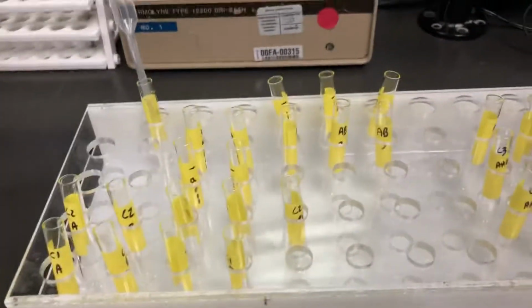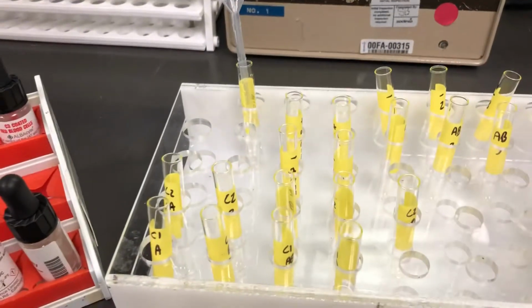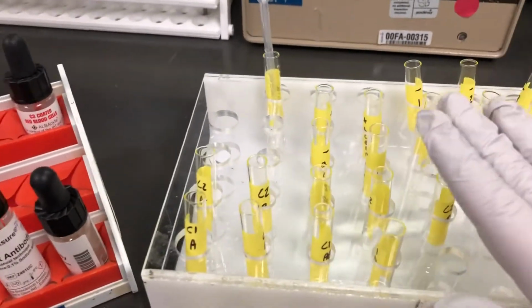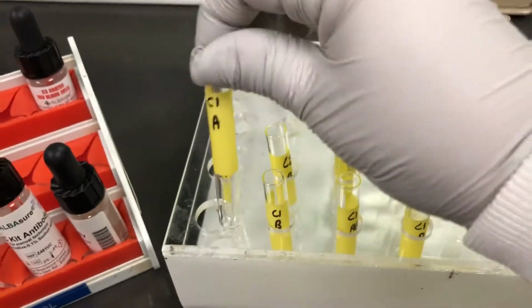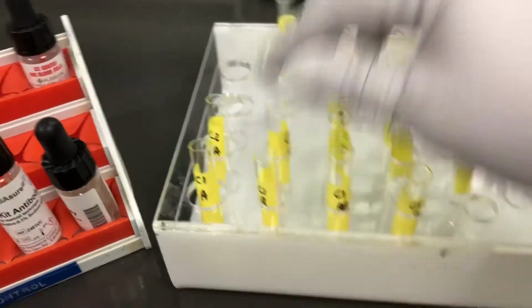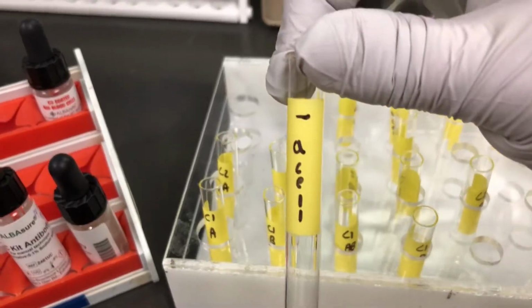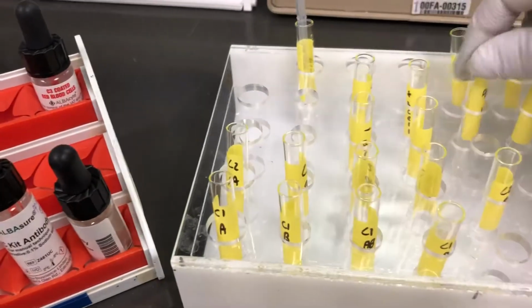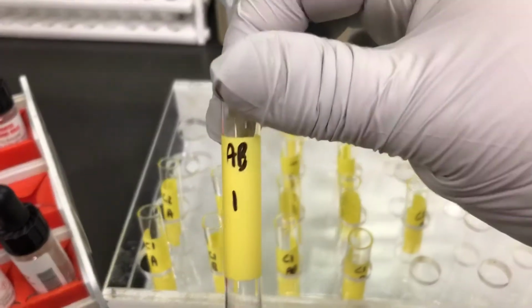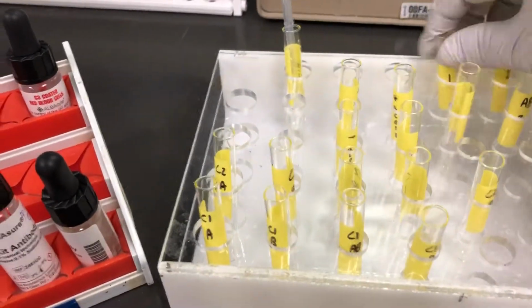So when you look over, I set up the tubes already. One of the things that you want to look at, QC can be really scary in tube when you first look at it, but you want to make sure that you label everything clearly. So this is cell 1A, so that'll be your anti-A, and then I use A cells to denote if I'm doing a back type, or screen cells will look like just antibody and 1, so that would be our positive control, and then negative.